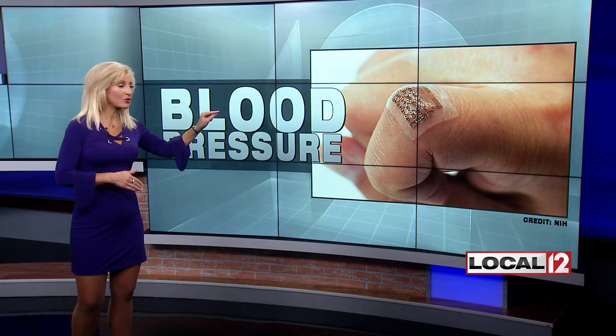The team engineered this stretchable, flexible device so it could be worn as a skin patch. What you're seeing here is an array of ultrasound transducers — every one of those little things is a tiny transducer. The best one, or the one that can best position over an artery in your neck, or on your wrist, or on your finger, is then selected.